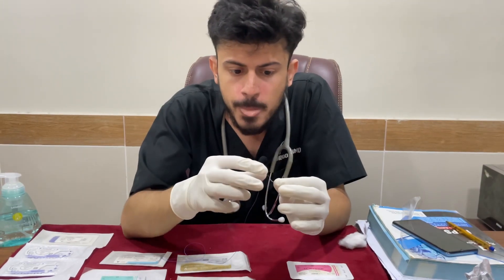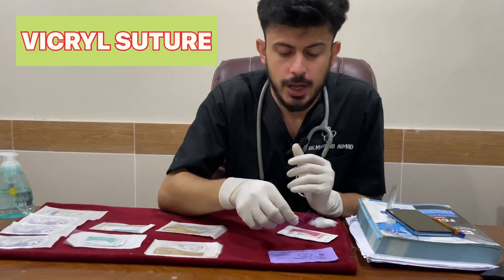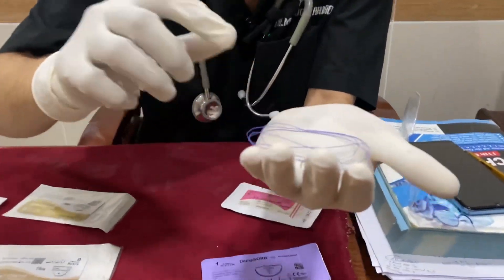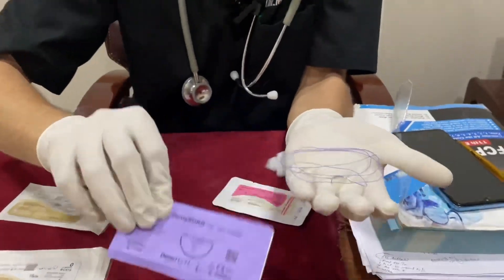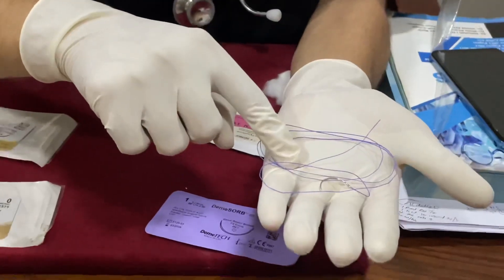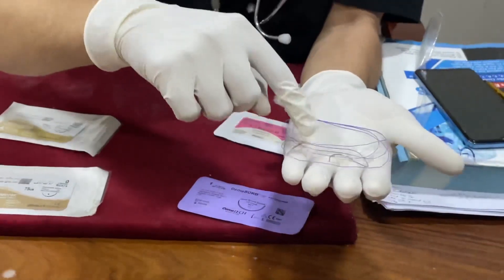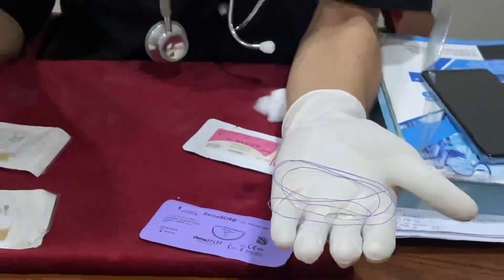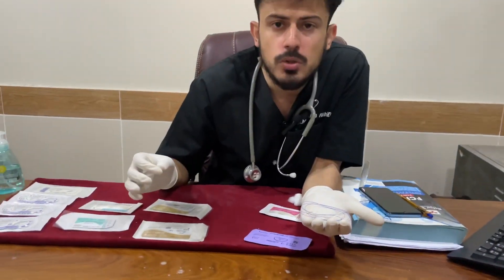Now let's discuss the Vicryl suture. How can you identify it? There is purple packaging and the suture itself is also purple. So the purple packaging and purple color of the suture identify the Vicryl. It is usually used in general soft tissue approximation, ophthalmic surgeries, and peripheral nerve anastomosis.